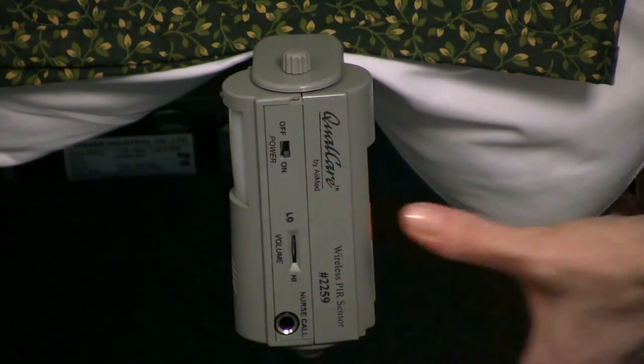To operate the unit turn the device on using the on off selector on the side. Adjust the volume settings as desired. It is now ready for use.